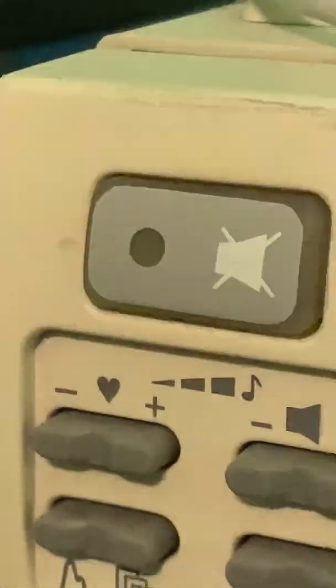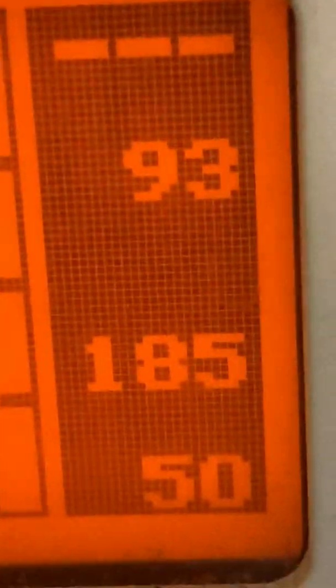So you can see the alarm silence button flashing and blinking, and the number for the oxygen saturation blinking. The upper alarm limit is also blinking. We don't want it to alarm if it's at 100, so I'm going to turn it off.